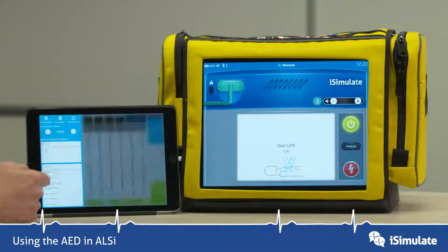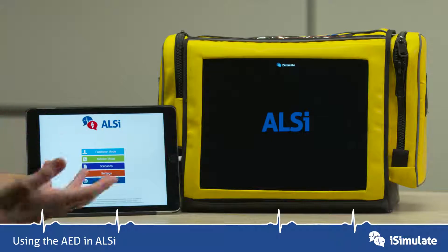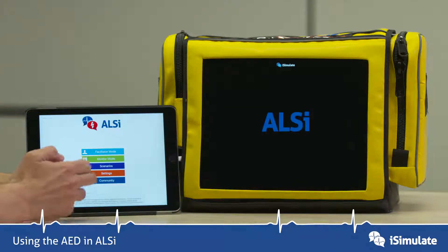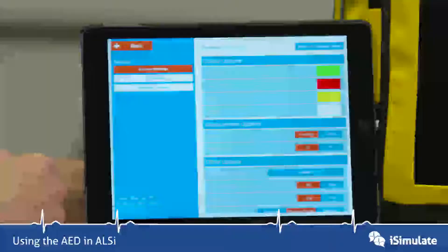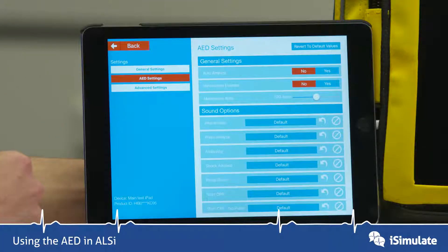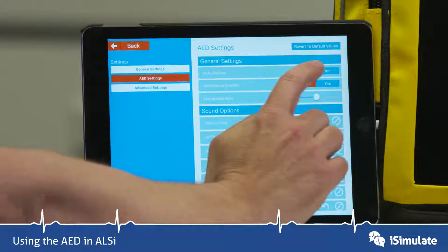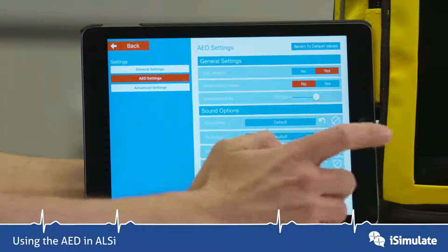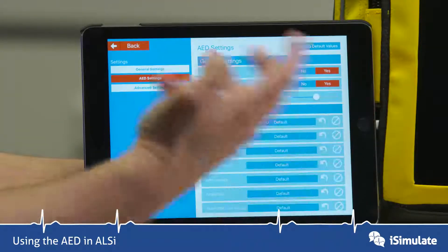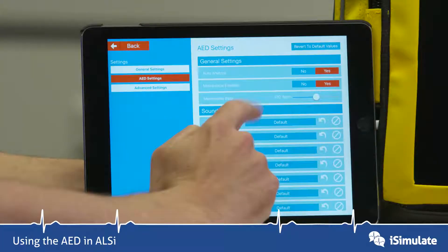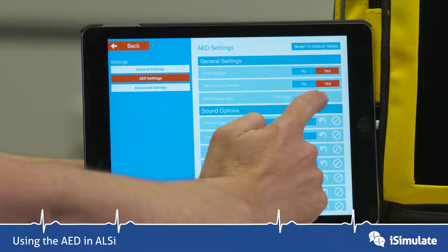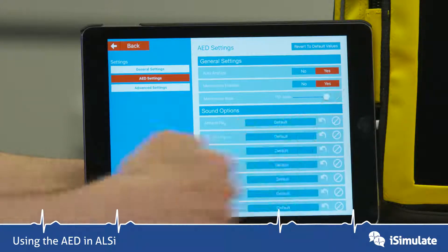Let's go back into the settings to see how we can change the functions of the AED. We're going to go into settings and then into AED settings. We can set auto-analyze to yes or no — we can turn that analyze button off. We can have the metronome enabled from the start, and we can change the metronome rate — we should probably change that up to 110.